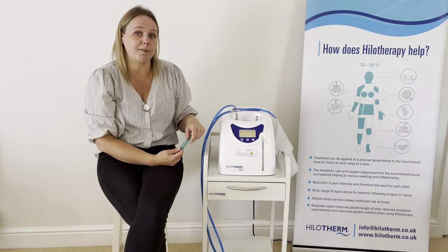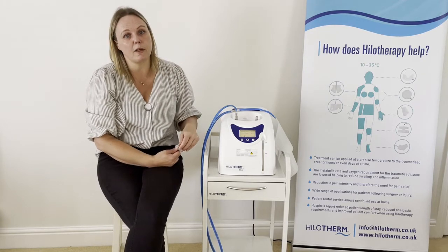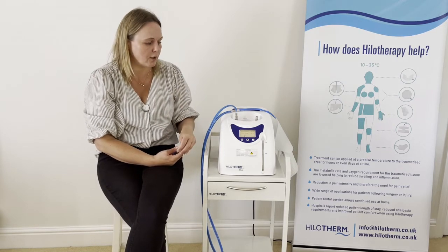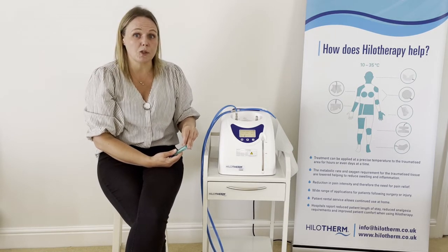It's worth looking out for some of the other videos — we do have fitting guides for the lower face cuff and also for the knee cuff, so please look out for those if you are using Hilotherm with facial or knee surgery patients. There should also be laminated sheets in the drawer for you. Thank you very much for watching.